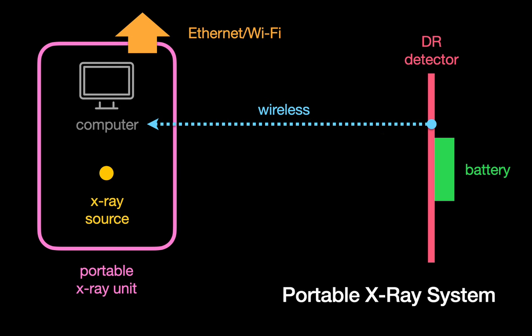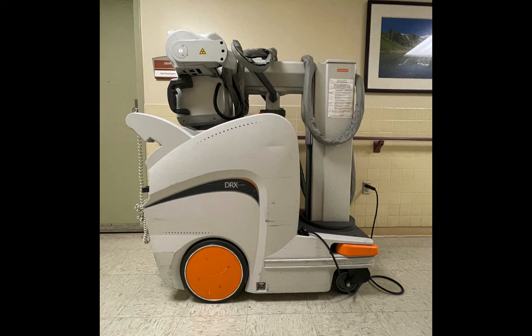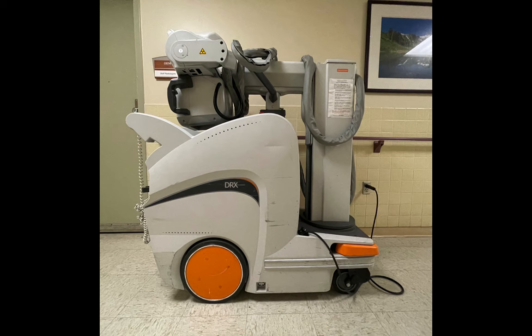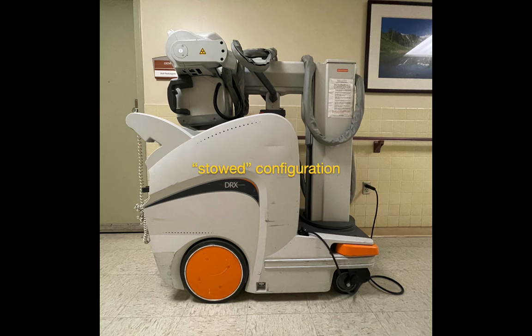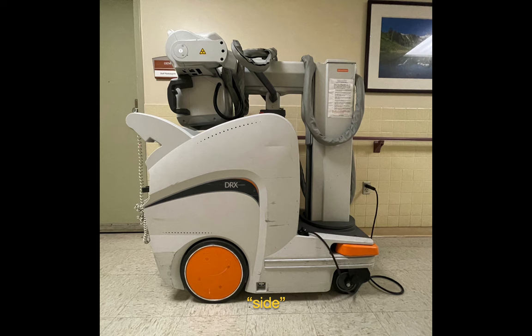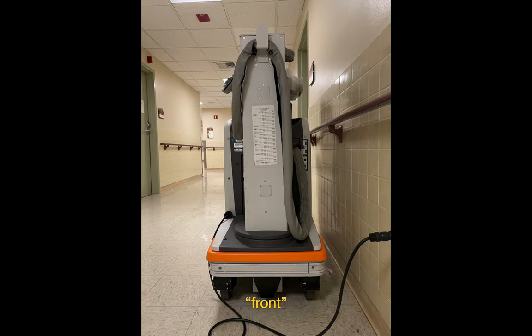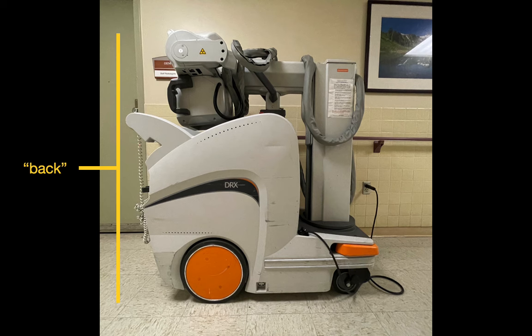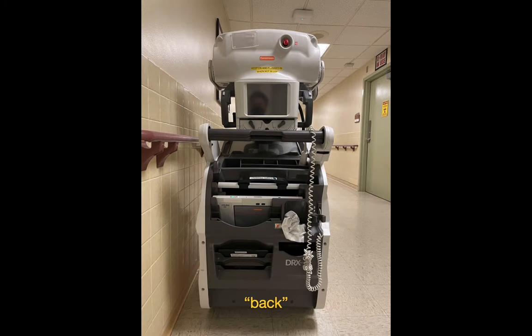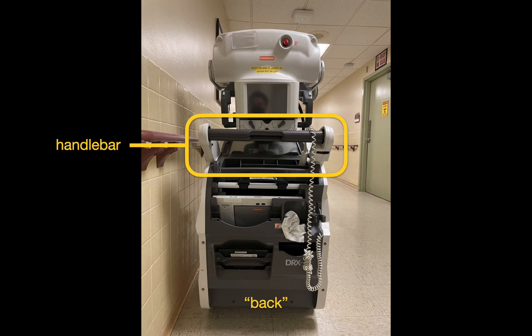This is what a portable x-ray system looks like schematically, and this is what a portable x-ray system looks like in real life. The system in this image is in a stowed configuration and ready to be pushed anywhere in the hospital. This is a side view of the unit, and this is what it looks like in front and in back. Like a shopping cart, you can see that there's a large handlebar on the back of the unit for pushing it around.